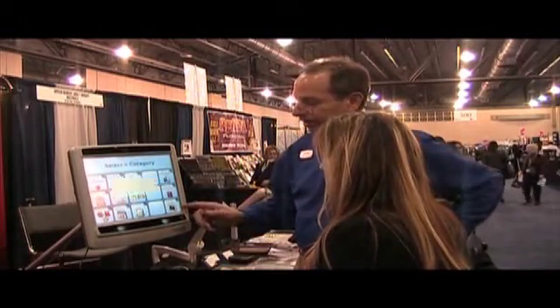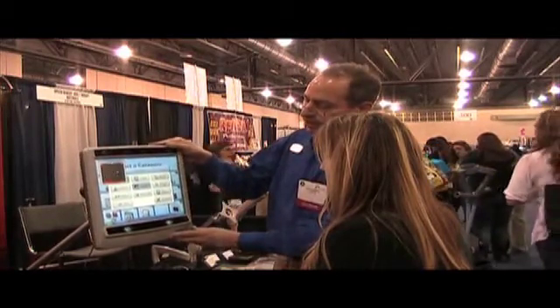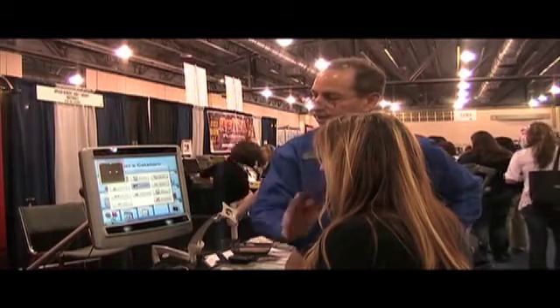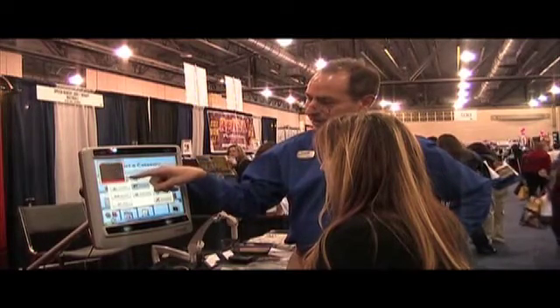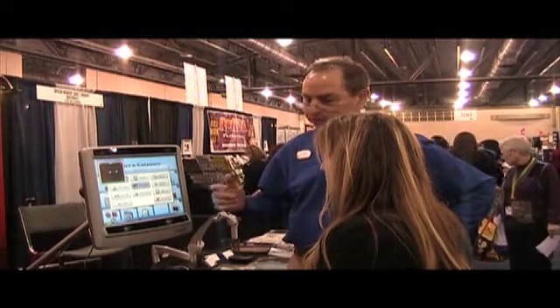It's very easy to calibrate this. So I'm going to have you look at the screen. And here we can see that your eyes are being tracked. Here's your left eye, your right eye. Kind of squint a little more — and you see it's not found. So it needs to see an open eye.